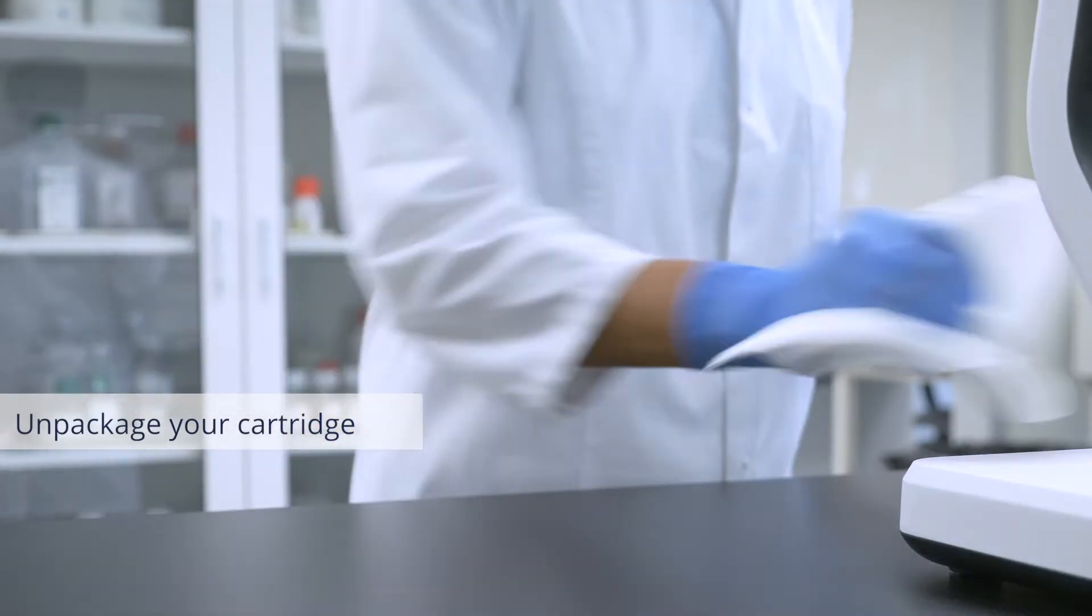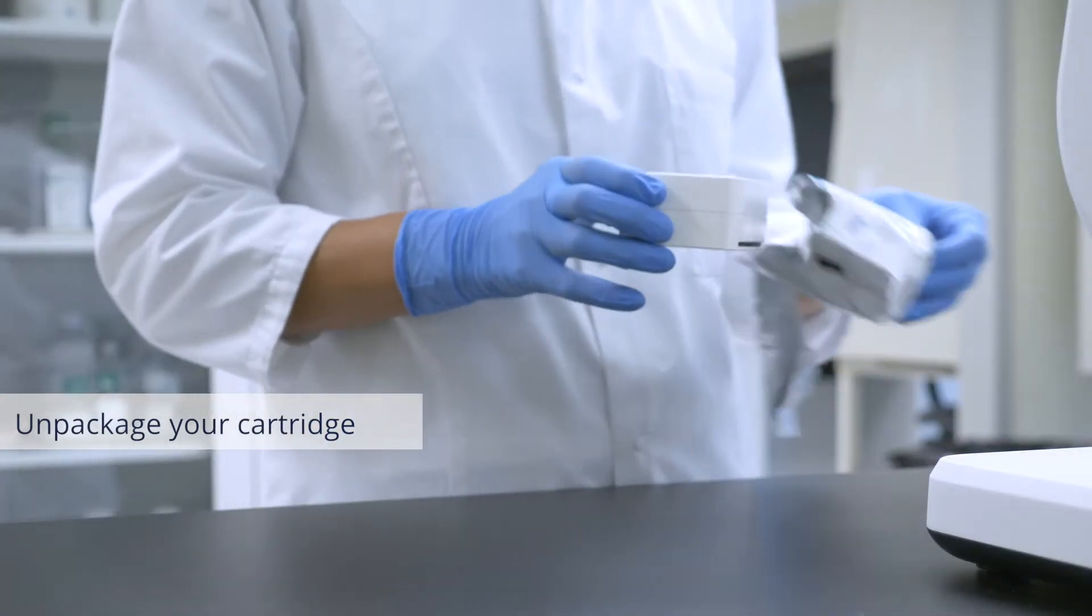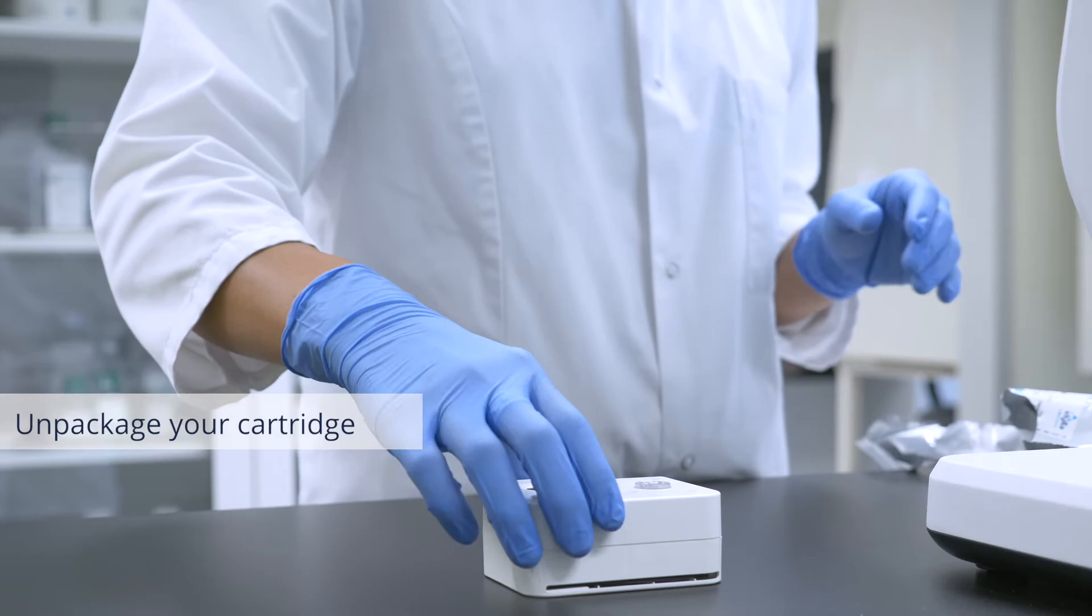All reagents and controls needed to run a test are pre-loaded inside the cartridges. All you need to do is add your sample.